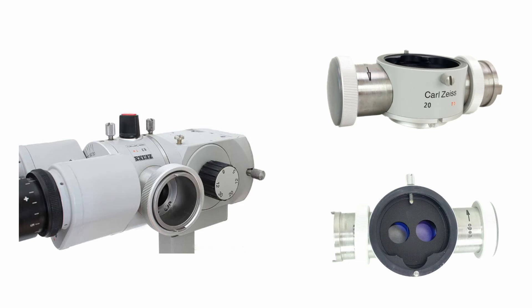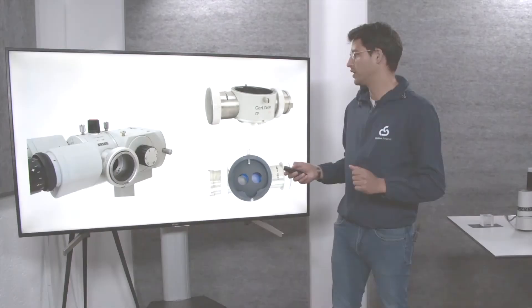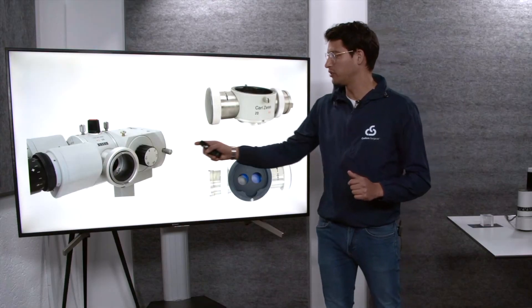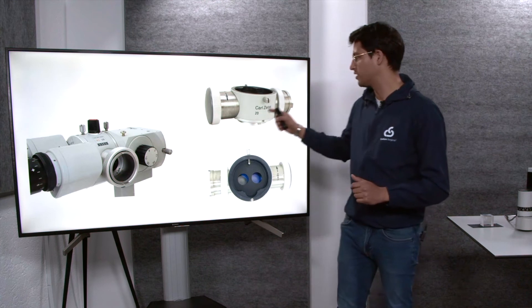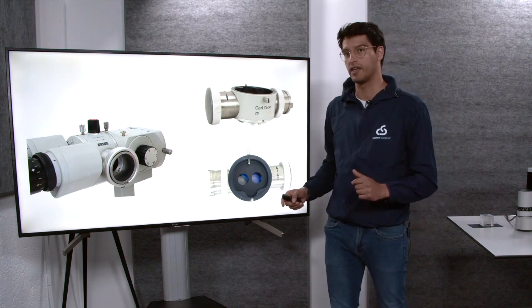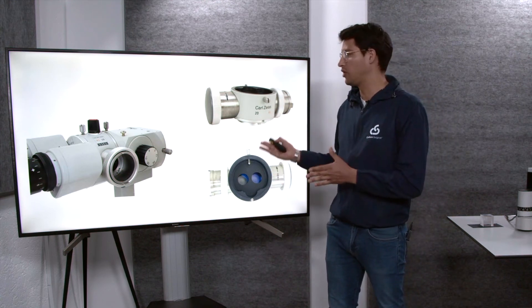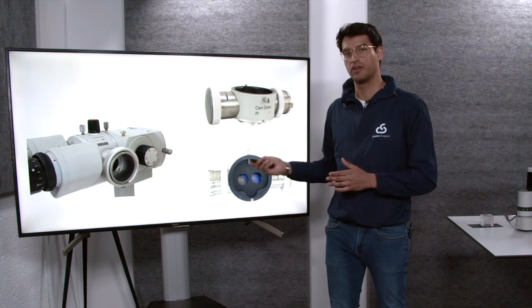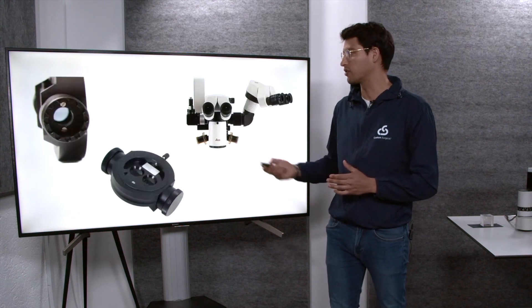Here you can see examples of beam splitters that are attached to either slit lamps or medical microscopes. For example, you can see a Zeiss beam splitter, and this is how it would look like. This would be one example of the beam splitters that you would find on your slit lamps or Zeiss microscopes.